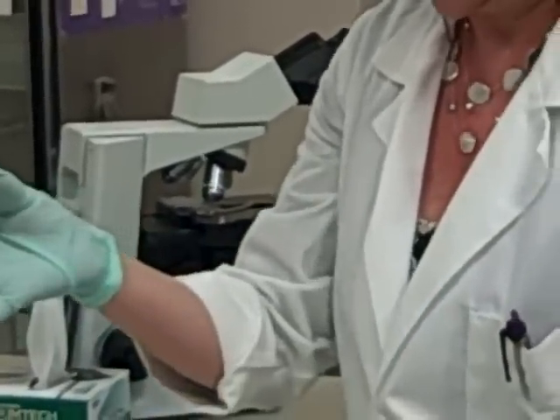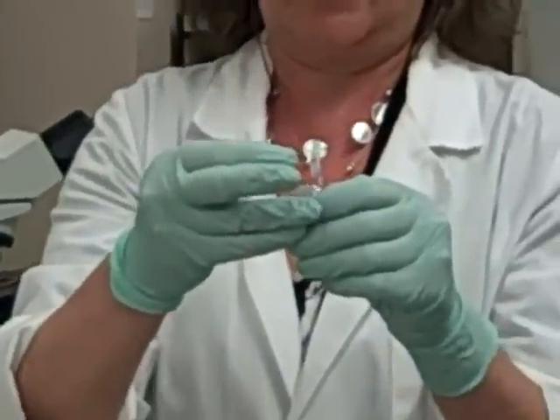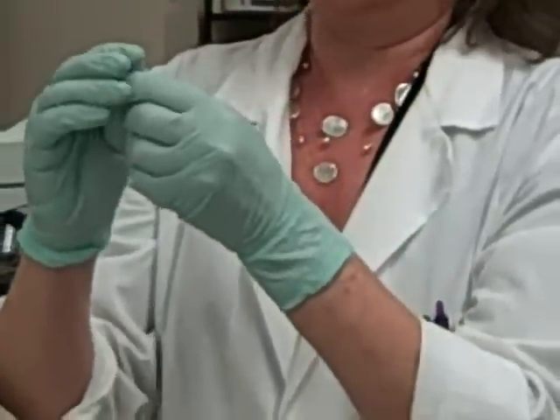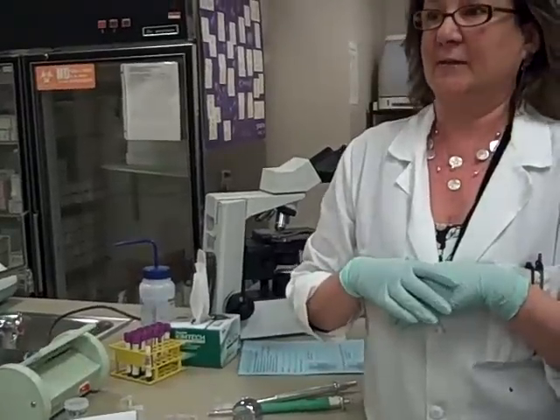You don't want to draw any fluid out, and then you're just going to take that whole capillary tube and pop it right in the vial. Then you're just going to mix until the blood comes out of the capillary tube. We're going to let that lyse the red cells for at least 10 minutes.